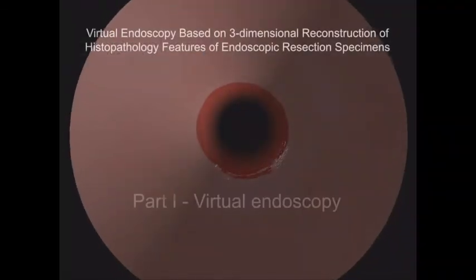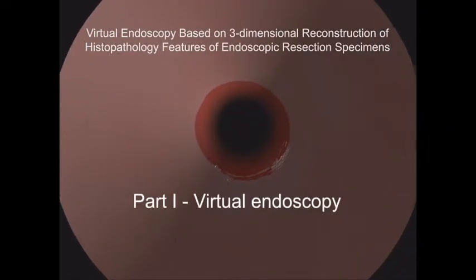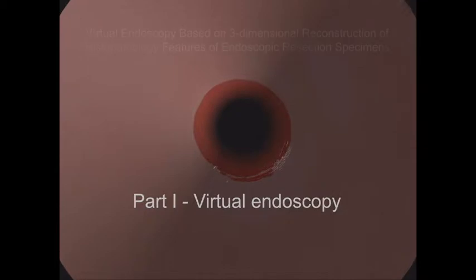The 3D histopathology reconstruction can be used for computing a virtual endoscopy of the specimen. To this end, the 3D model of the specimen pathologies is fitted into a virtual esophagus model.